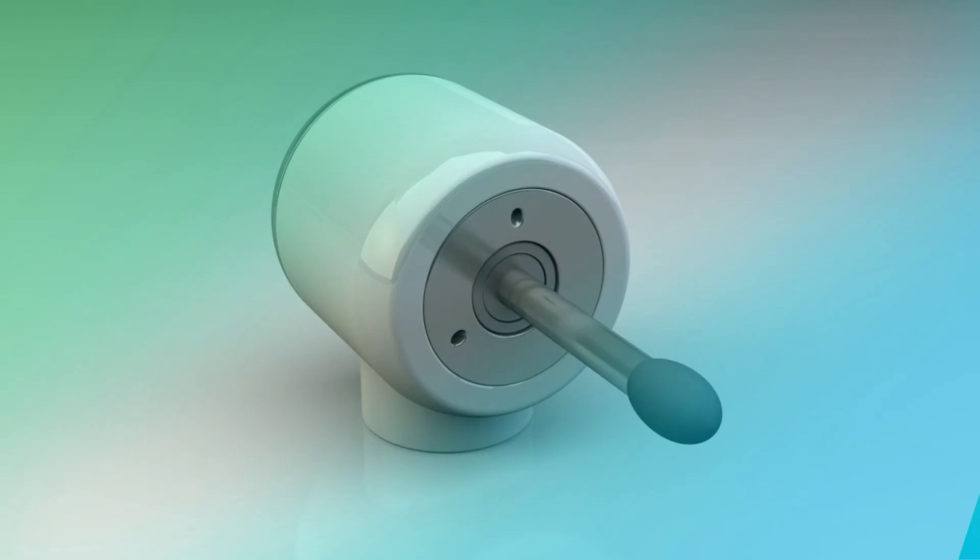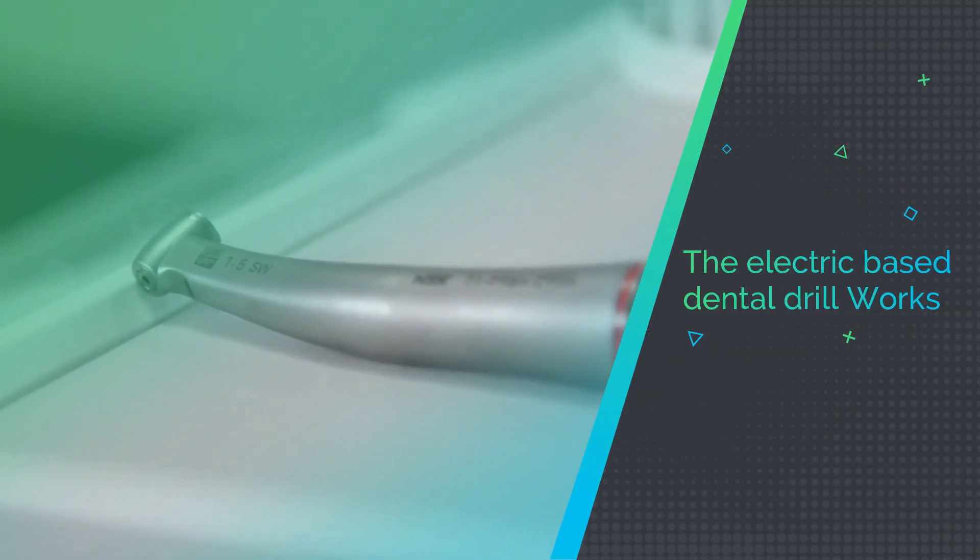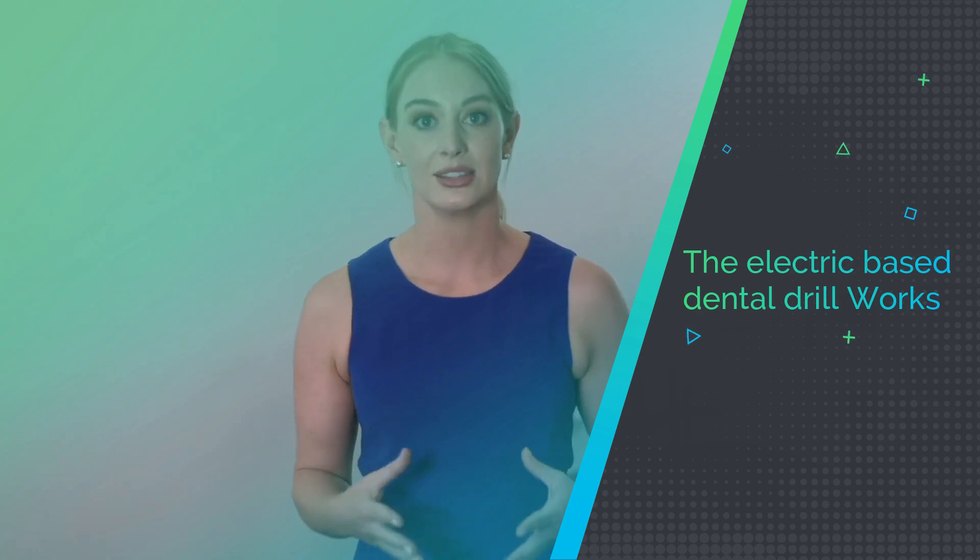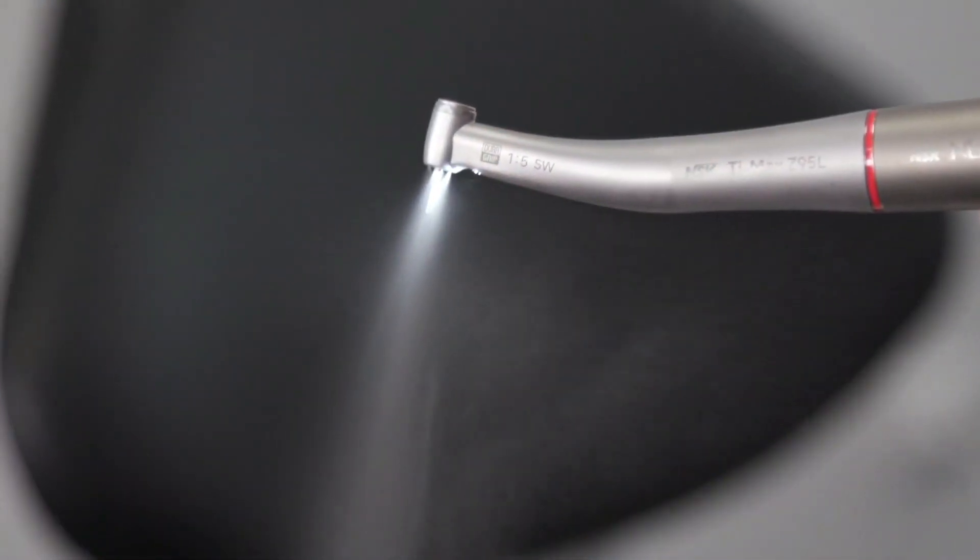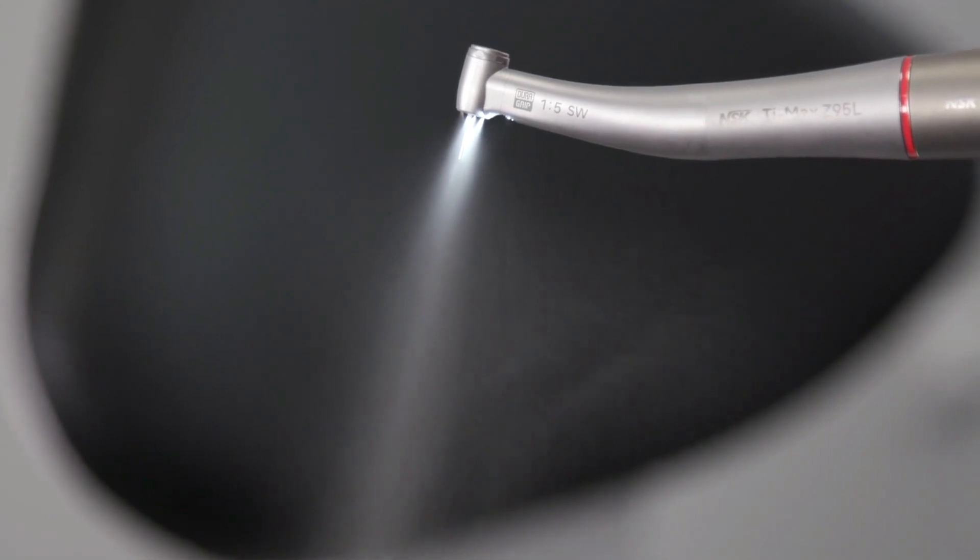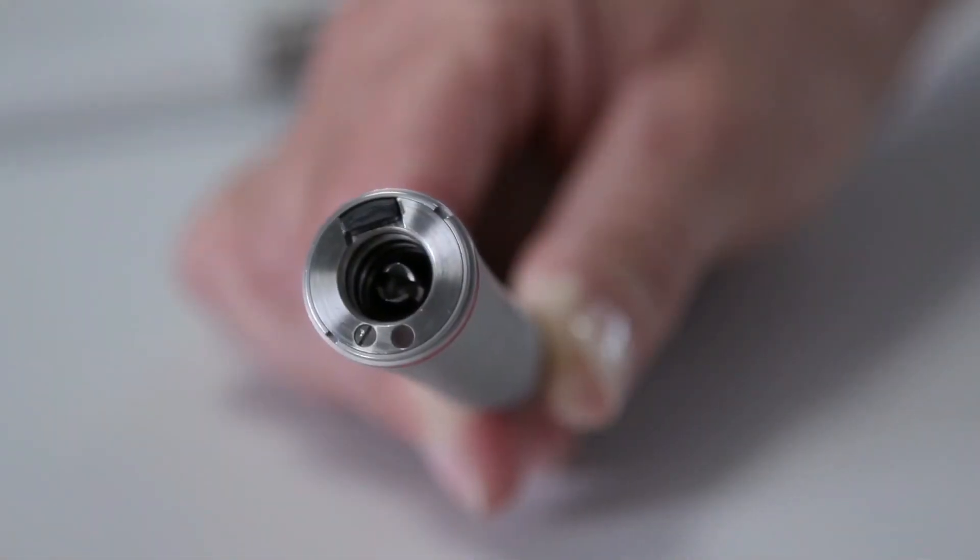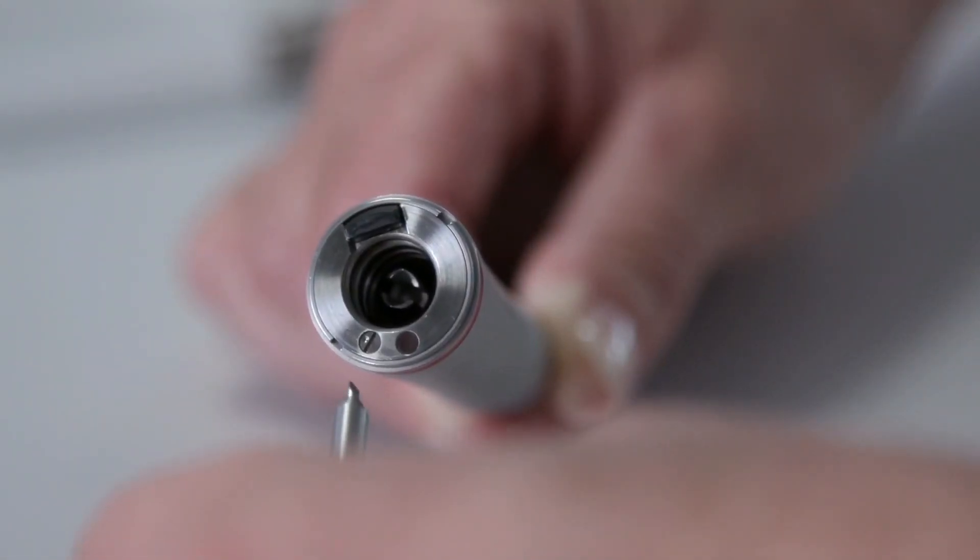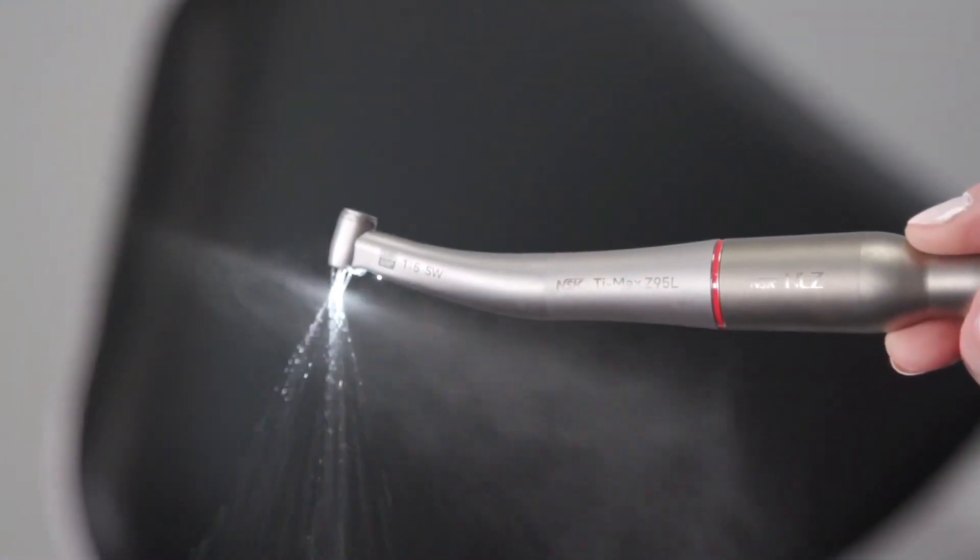Let's understand how an electric-based dental drill works. An electric dental handpiece, also called a variable speed handpiece, is powered by an electrical console with a touch screen for controlling various aspects of the handpiece attachments. This console, or control unit, can be portable or mounted to a dental delivery system.